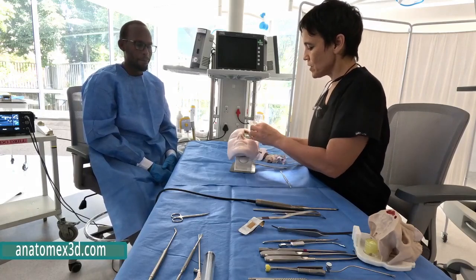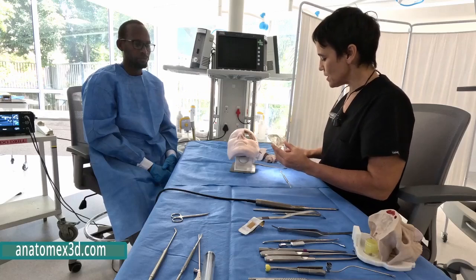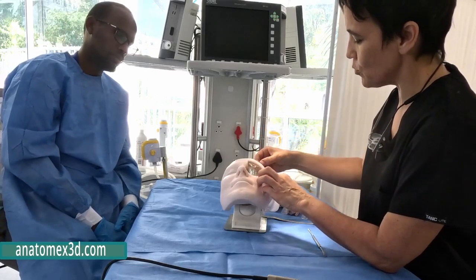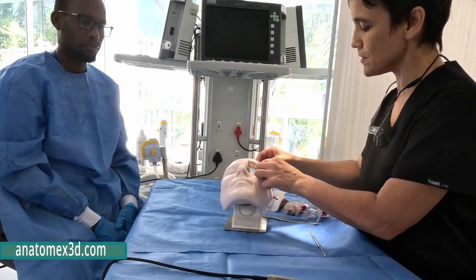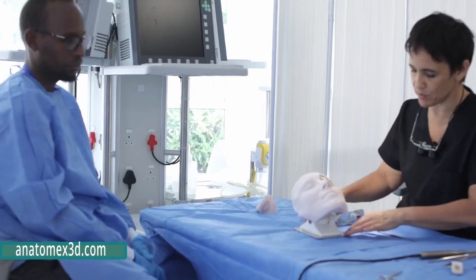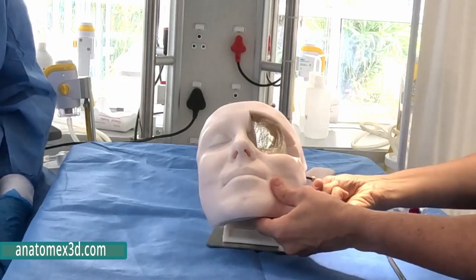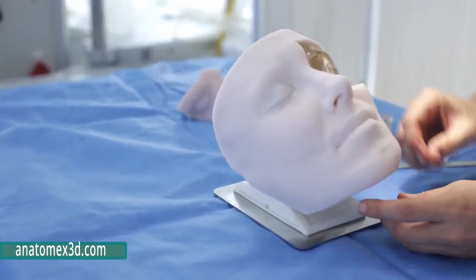So in this model, we have 4 different segments, and I'll explain each one of these segments. The first segment is very easy. It works either with magnets, or you have it for if you want to use navigation. You've got these 2 pins that you can really tighten the orbit with. You've got a small plate, so it's easy to put on the desk and to explain. You've got this revolving knob that you can put in any different direction to simulate your surgery.